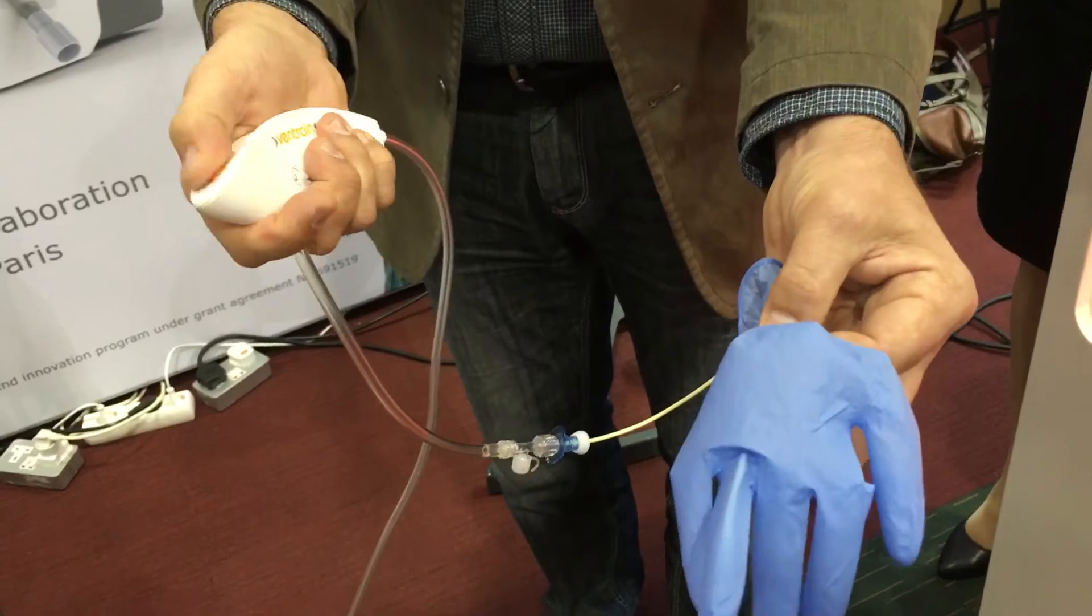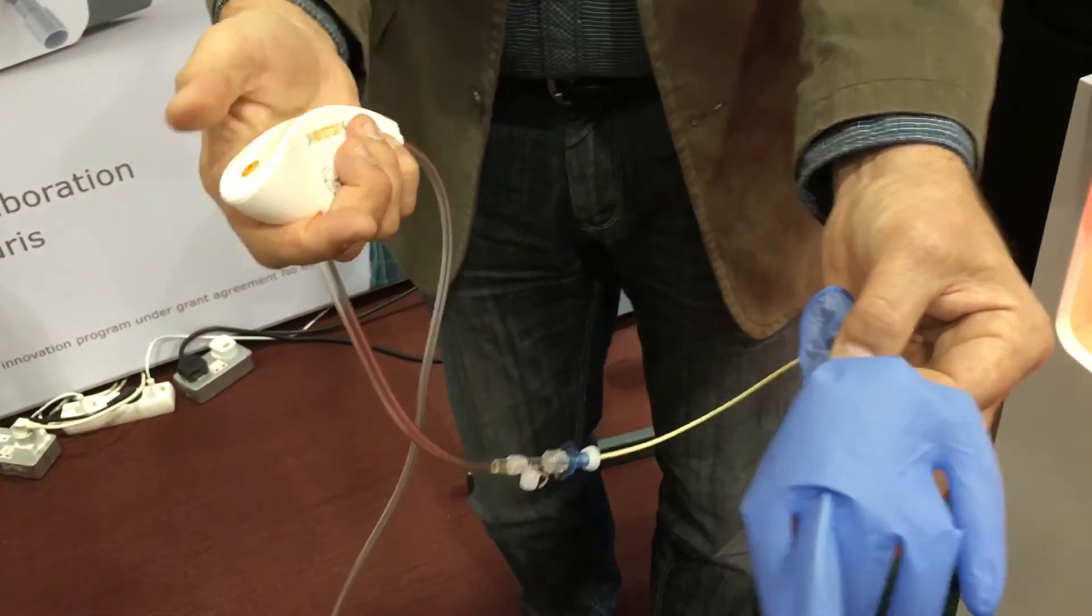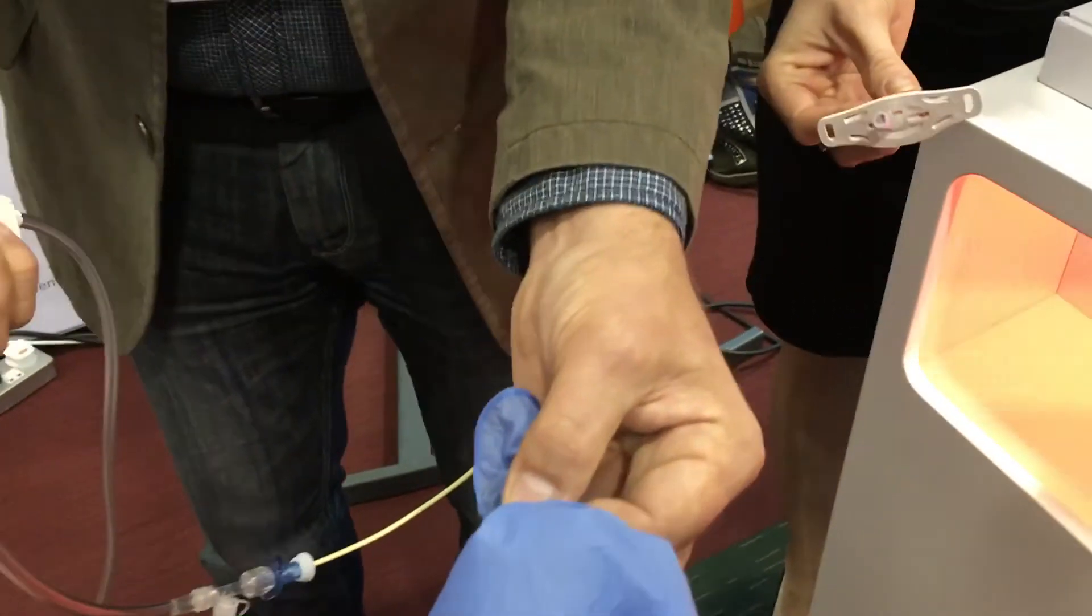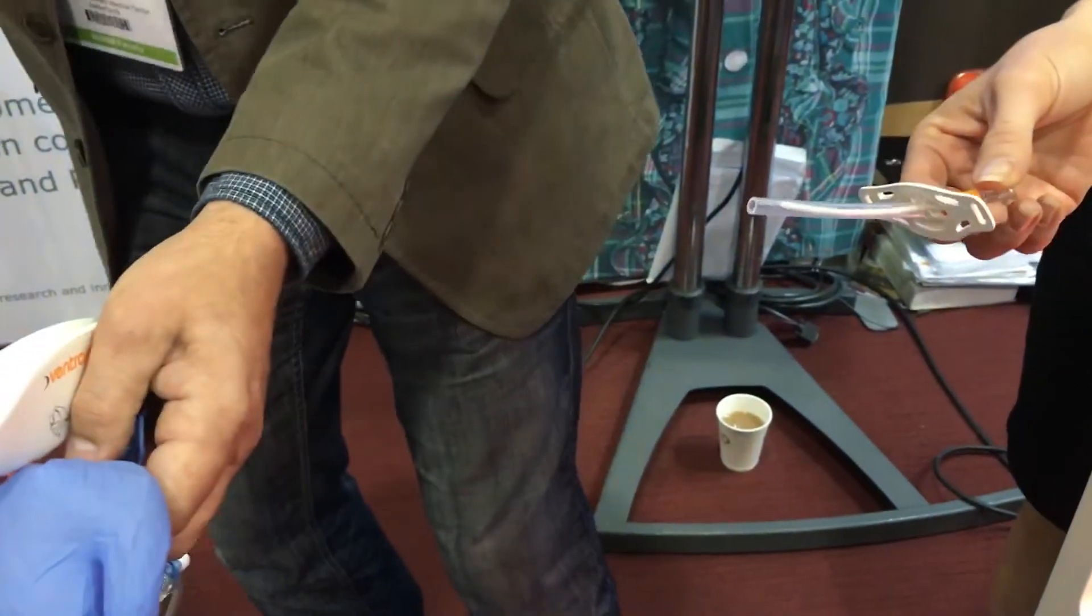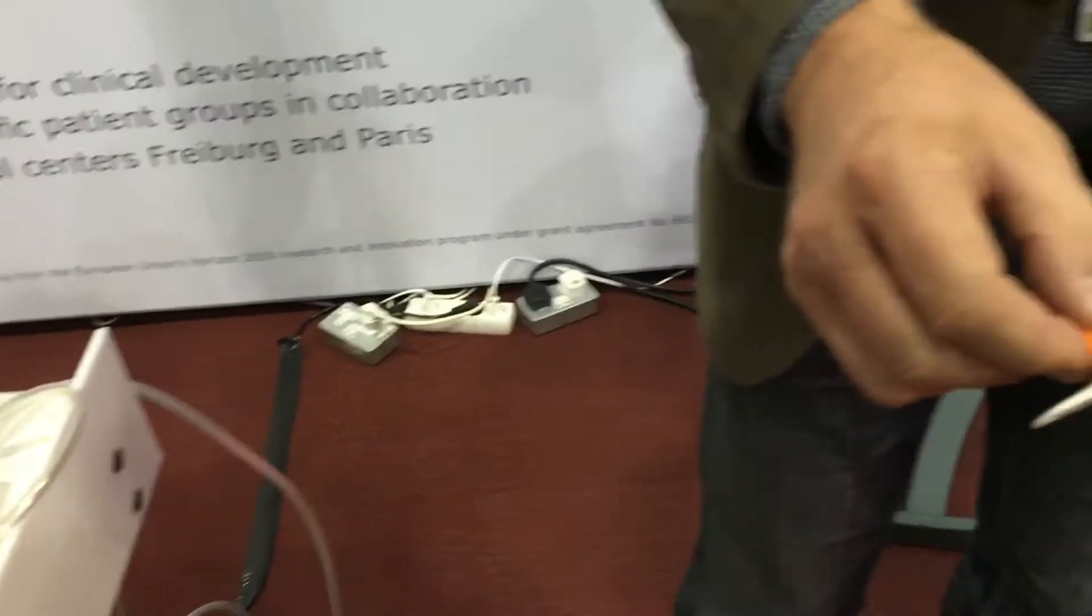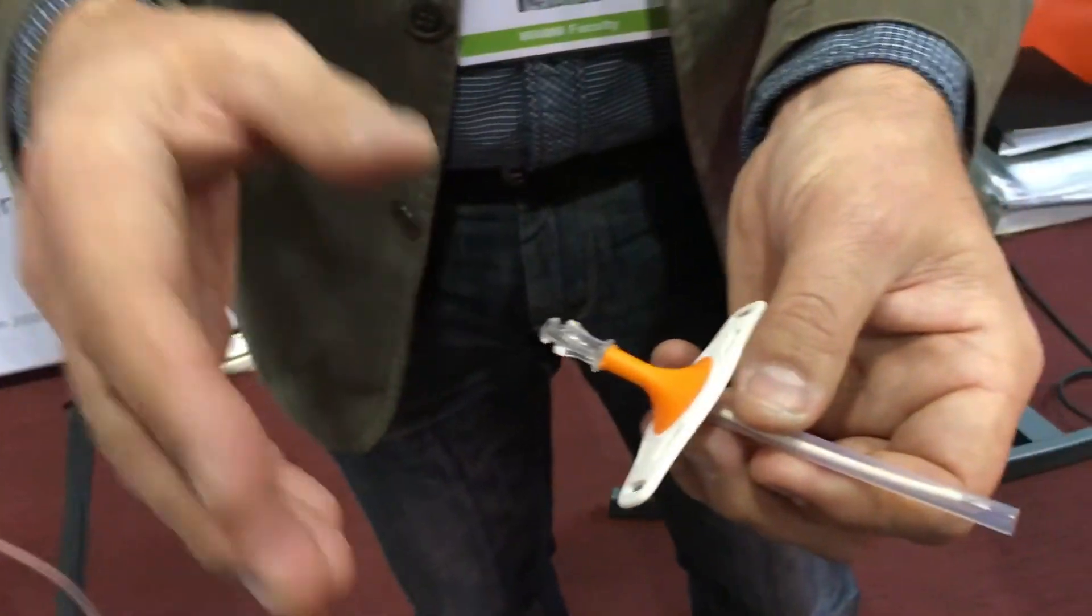And can you just show me the catheter that you've used with this as sort of a kink-resistant catheter here? Now, this, what I've demonstrated, it is applicable in children, small children.